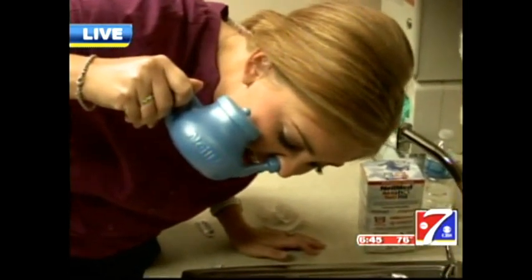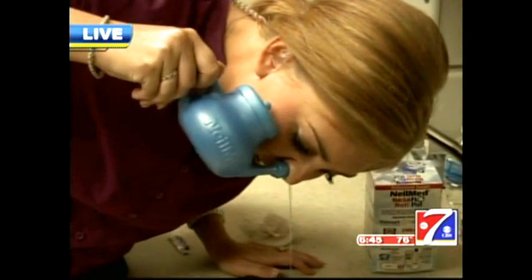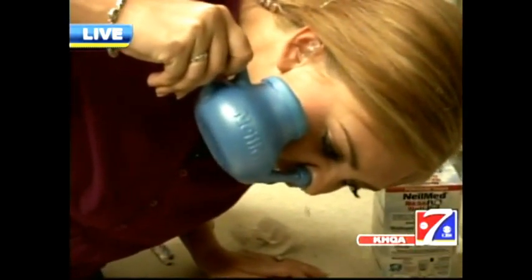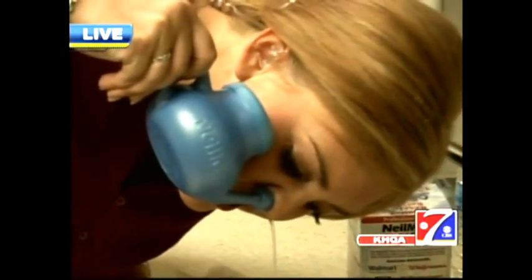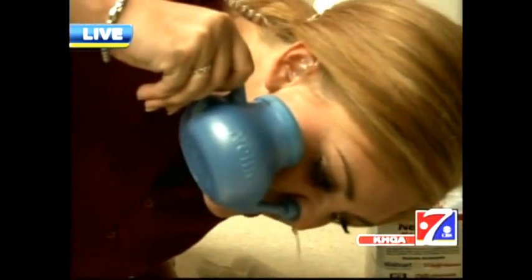Now, do you do this for allergies and sinuses? Yeah, it's good for allergy sufferers and people with chronic sinus disease. It's going to help thin and remove some of the mucus, bacteria, or pollen debris that is inside the nose. The nose is really the filter for our airway as we breathe in through the nose throughout the day and night.